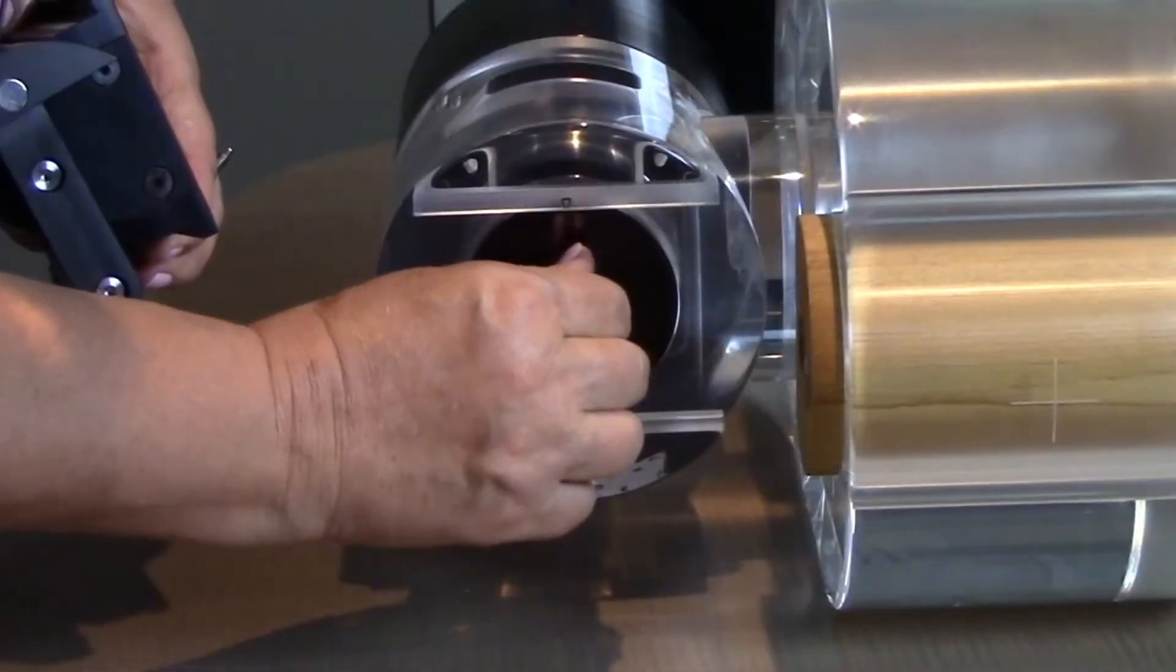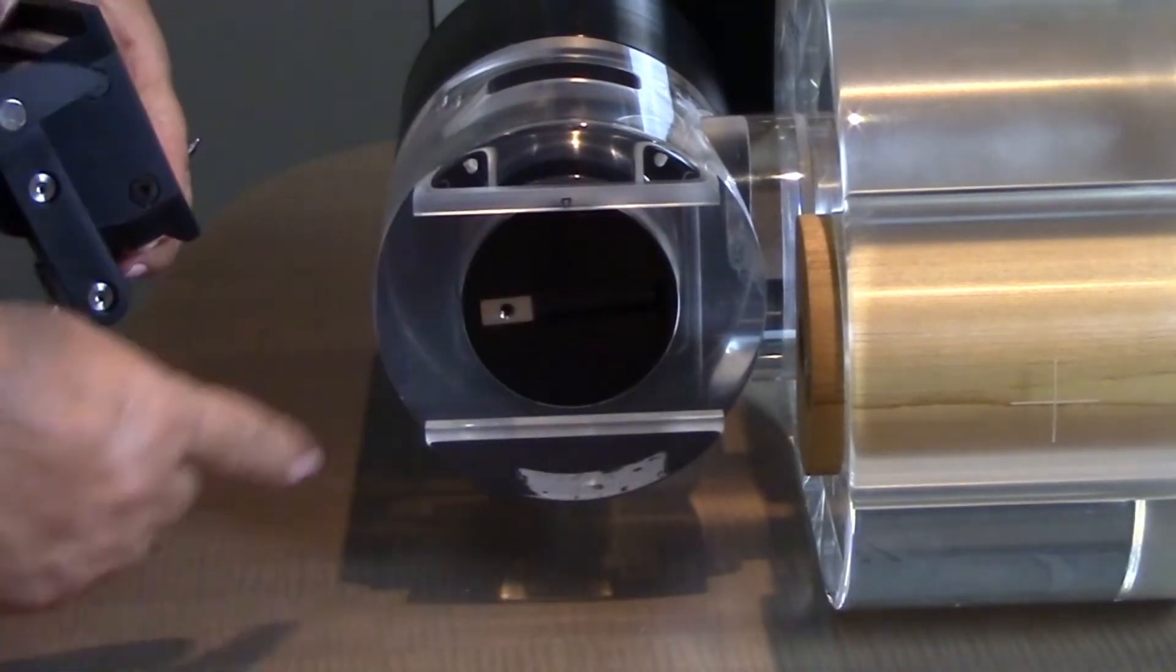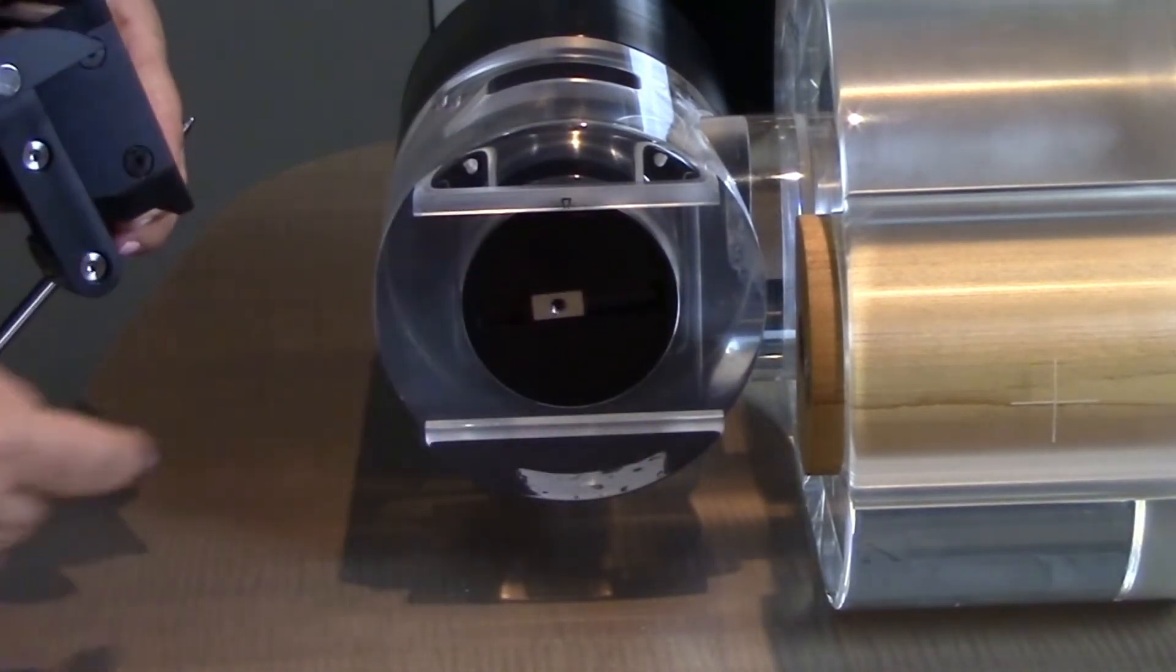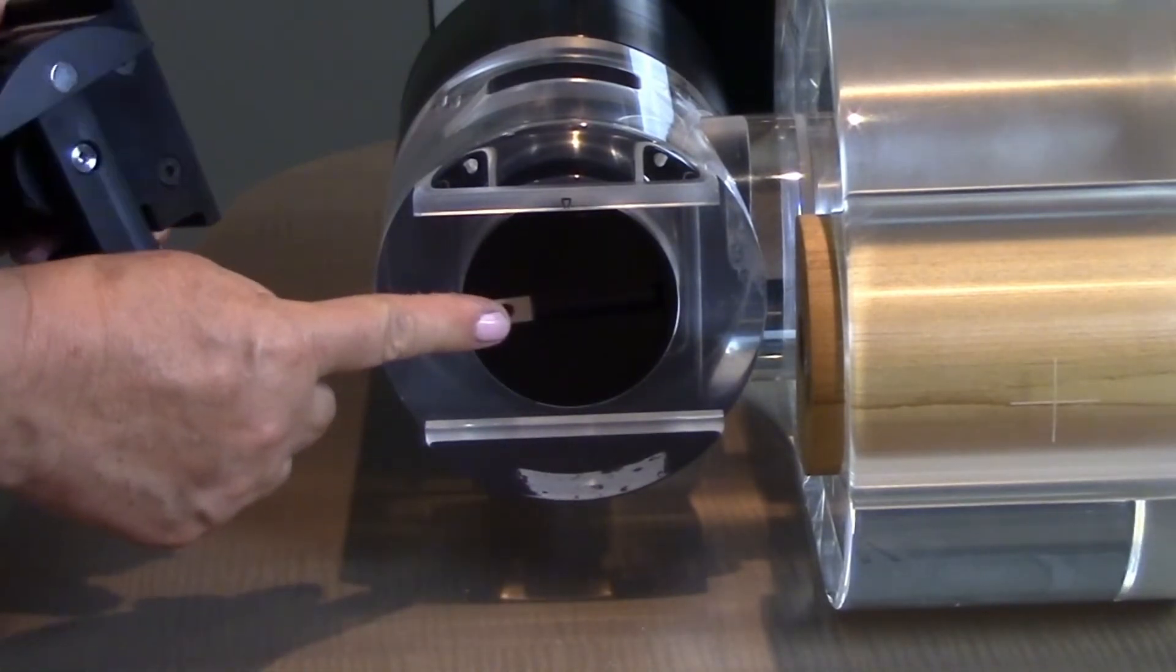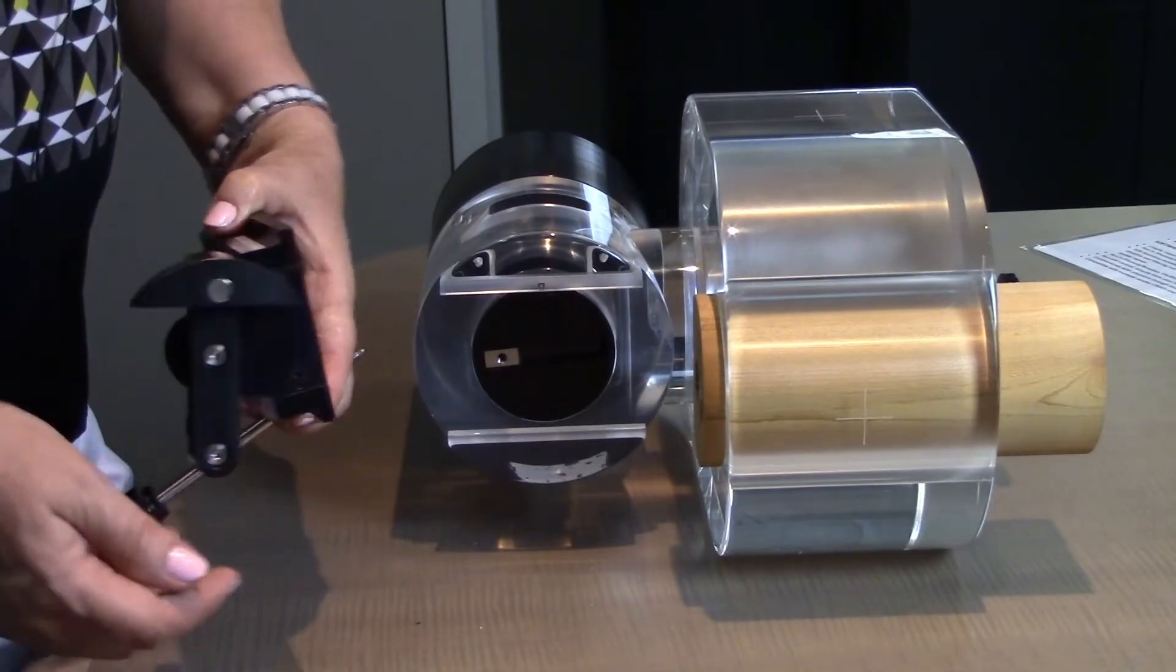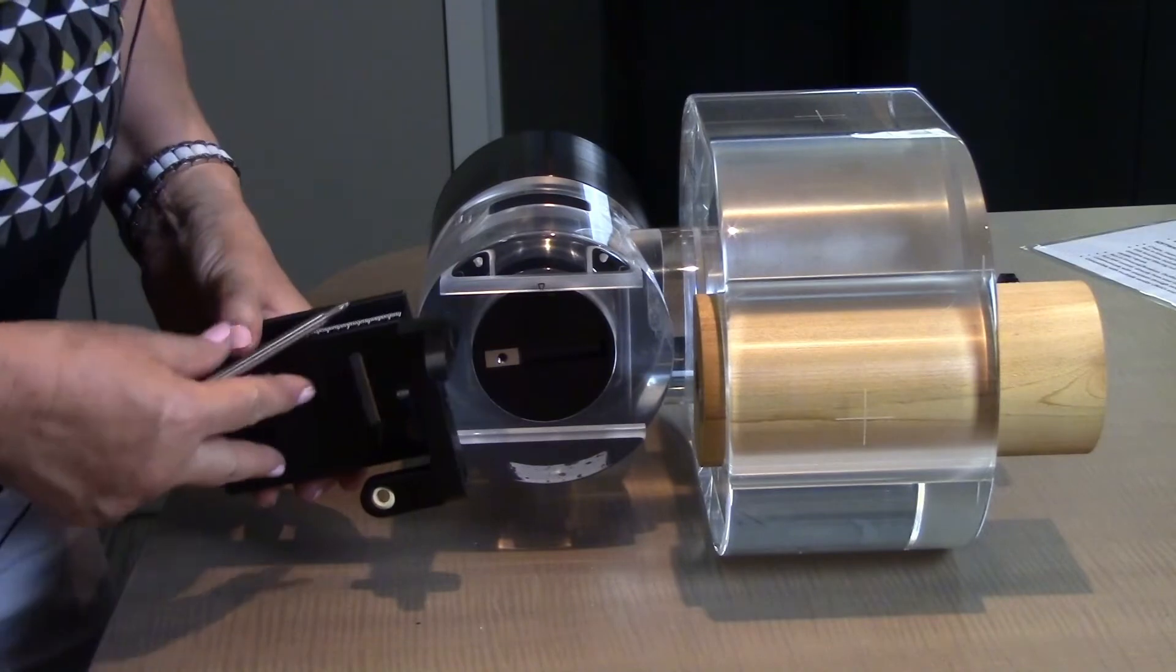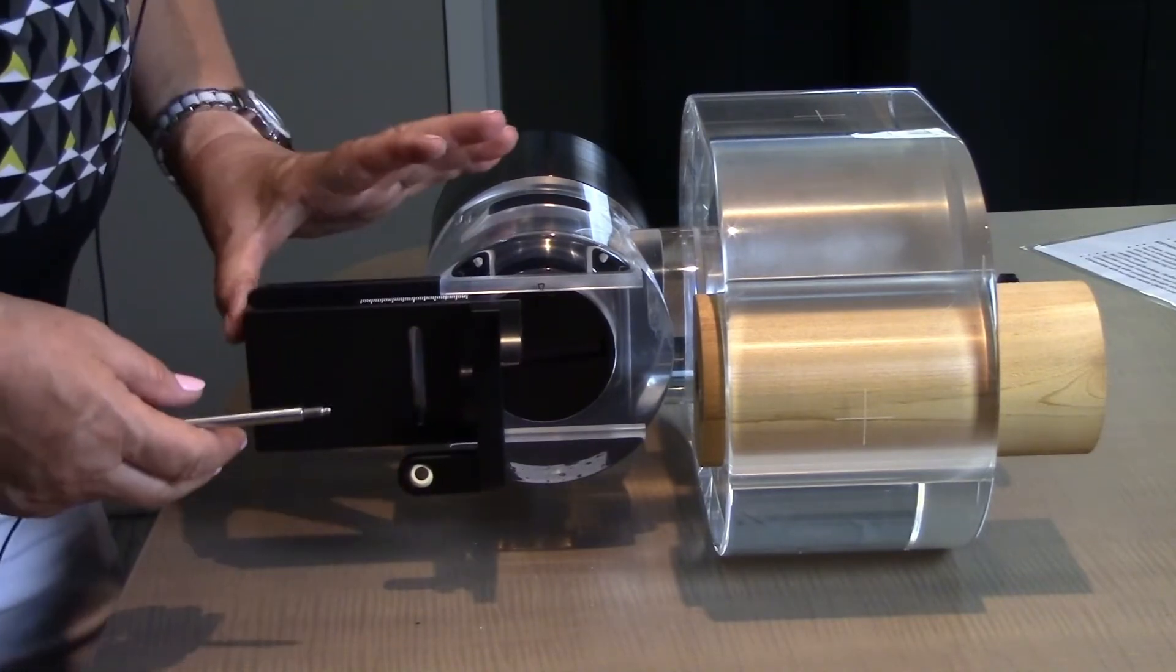But before you do that, you need to make sure that this is on the horizontal and the little screw which slides back and forth is on the extreme outside edge. You'll find that there are L shapes that allow you to put it on those courses in the track. You slide it in.